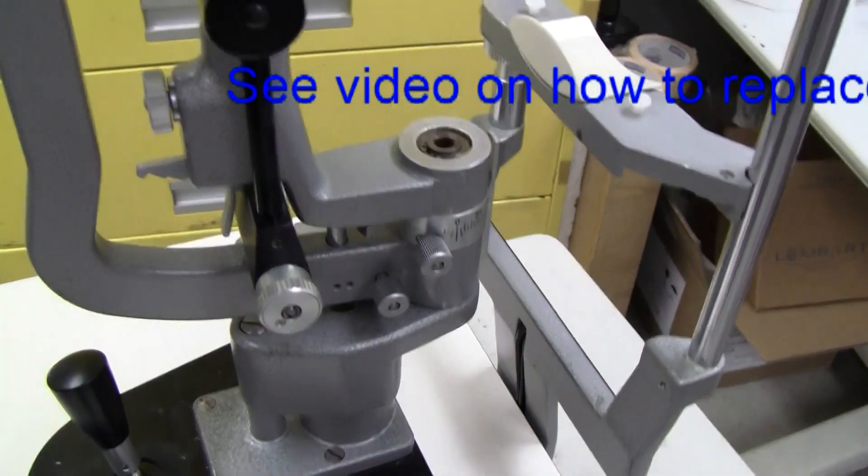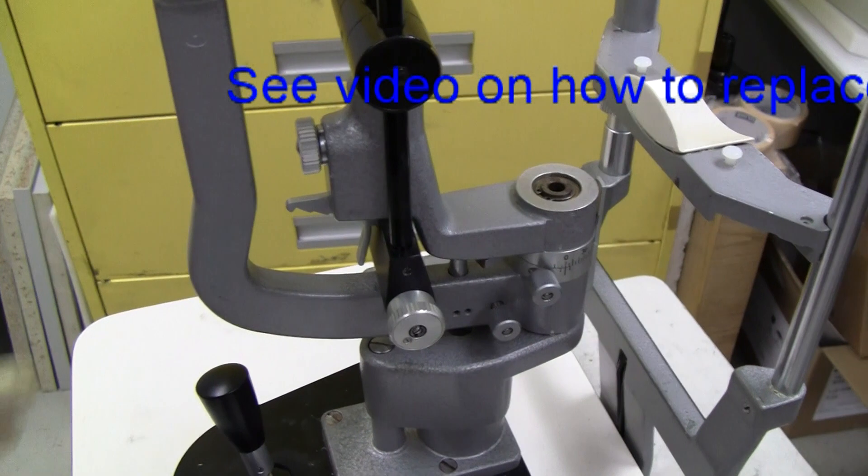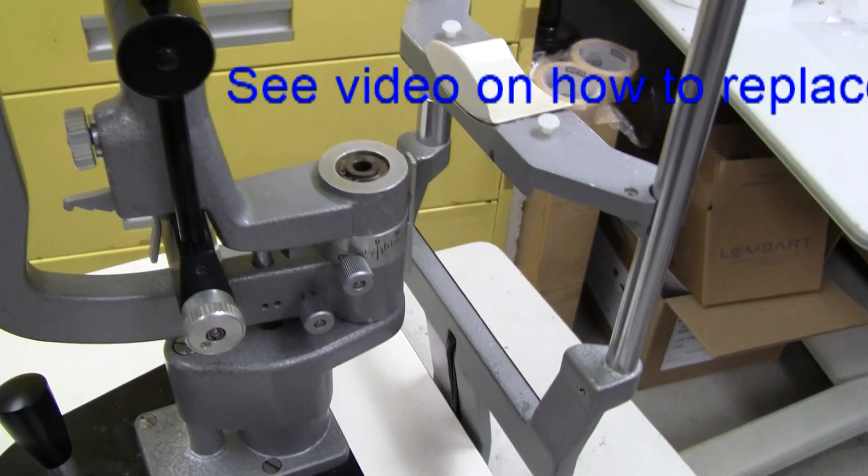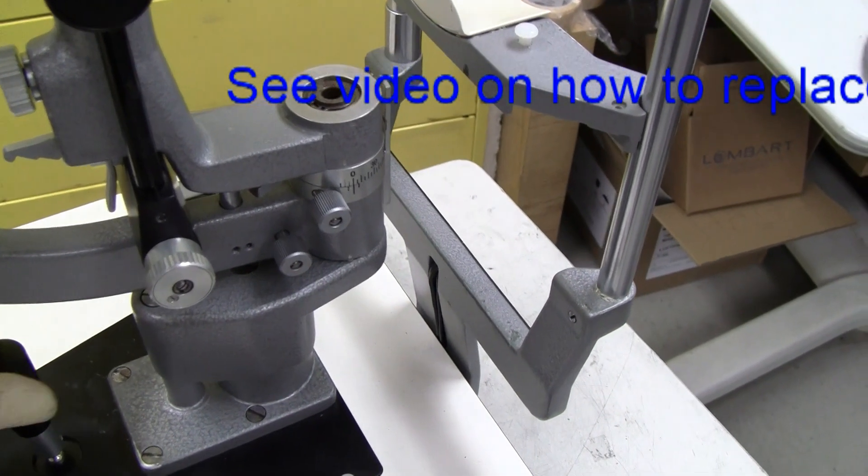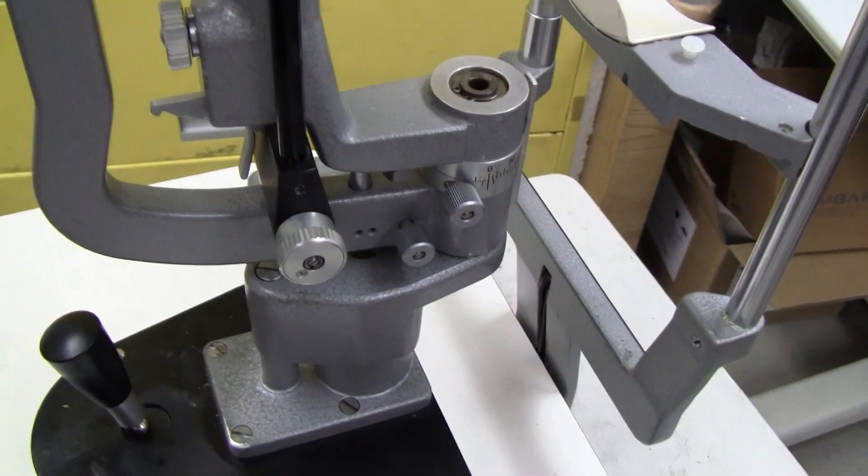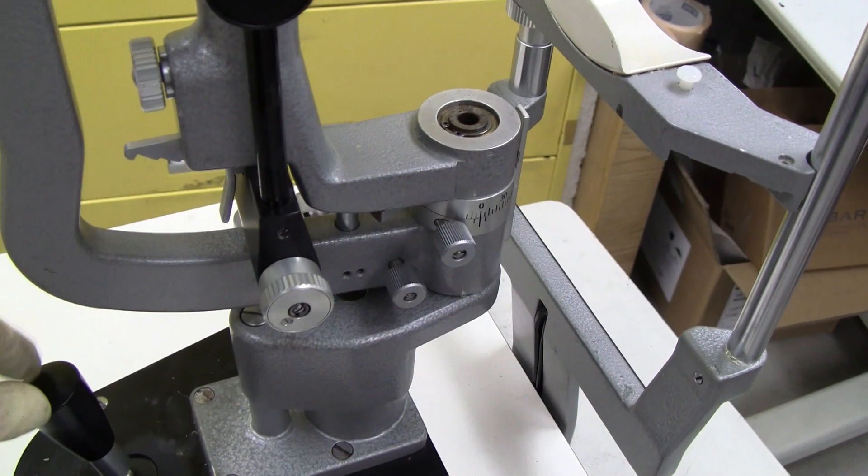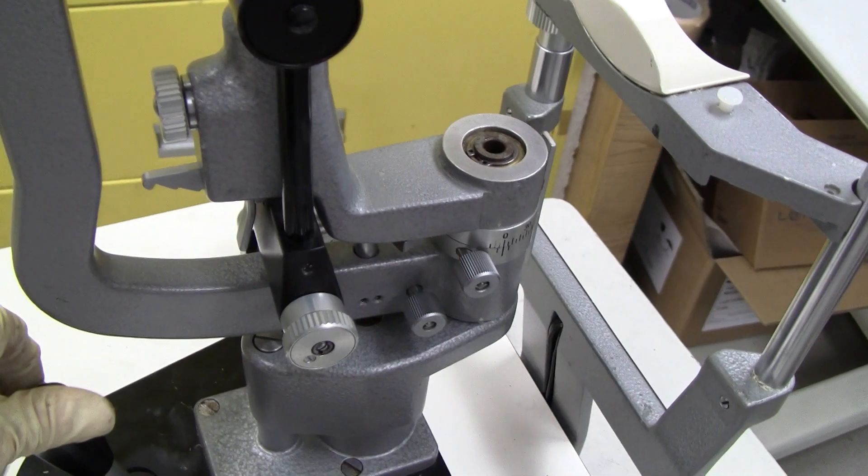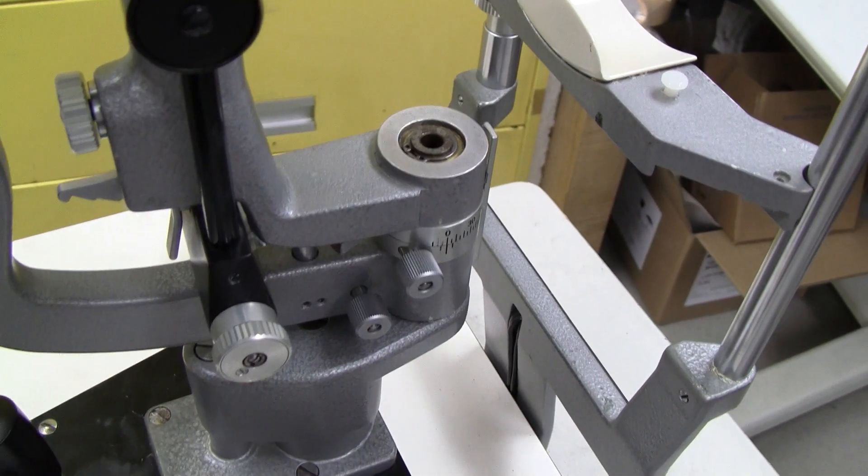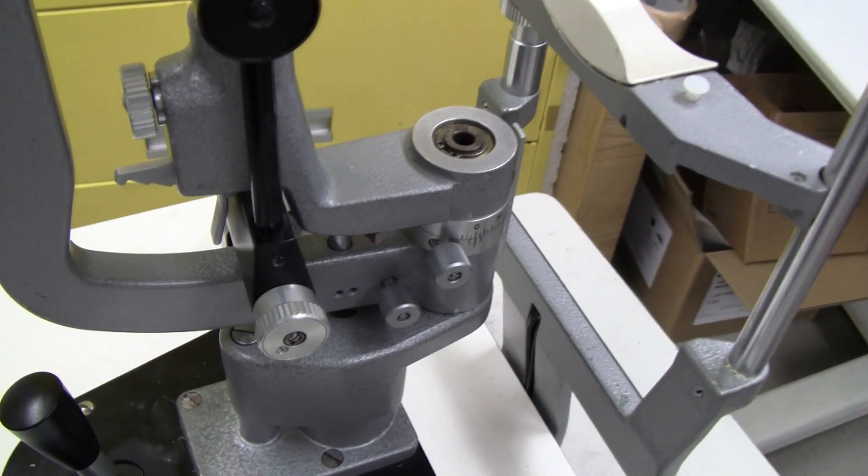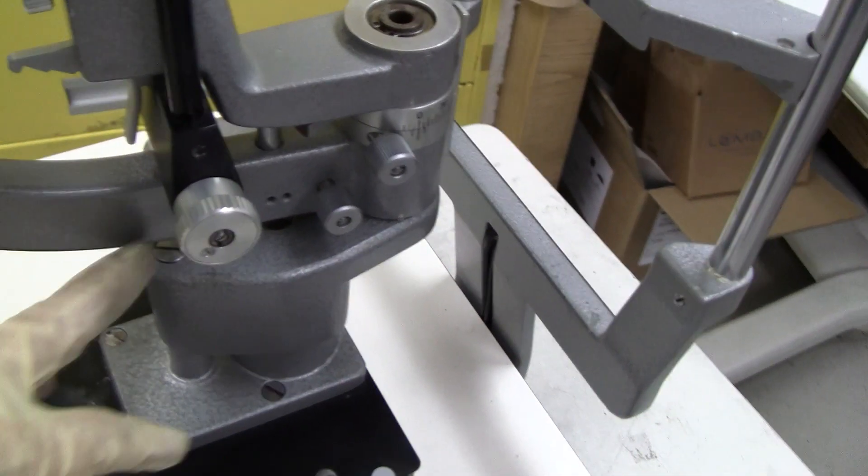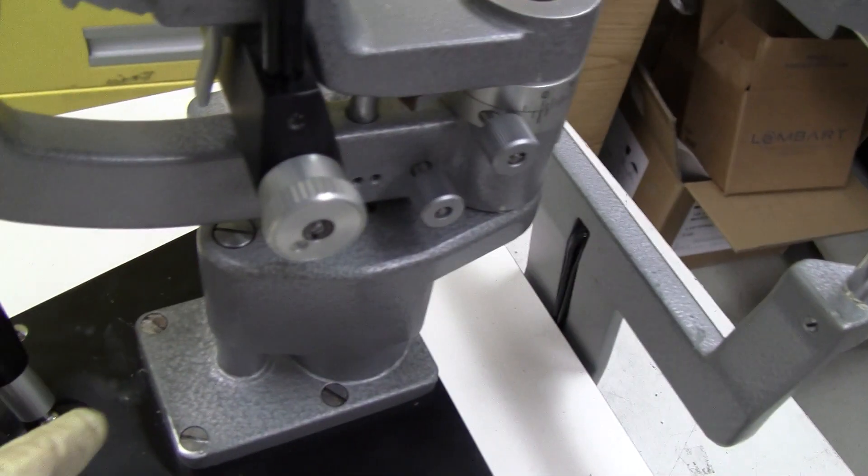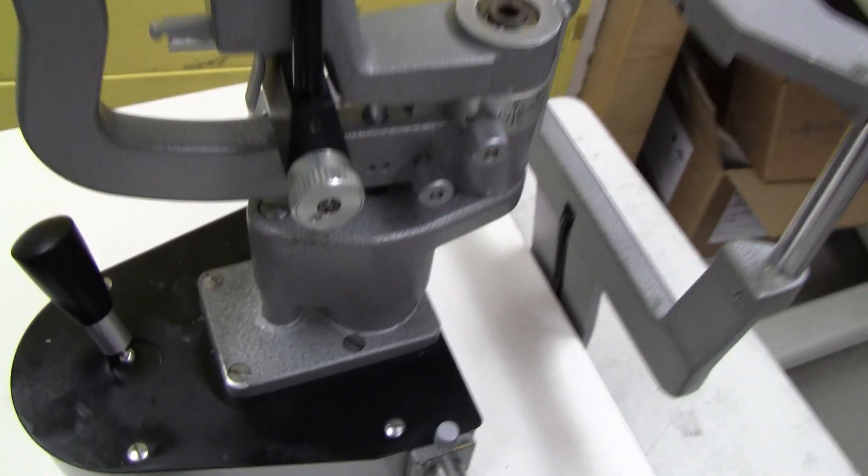I changed the main spring and re-greased it, and it seemed to help it a lot, but it was still a little bit too easily going down, so I took the spindle out and re-greased it.